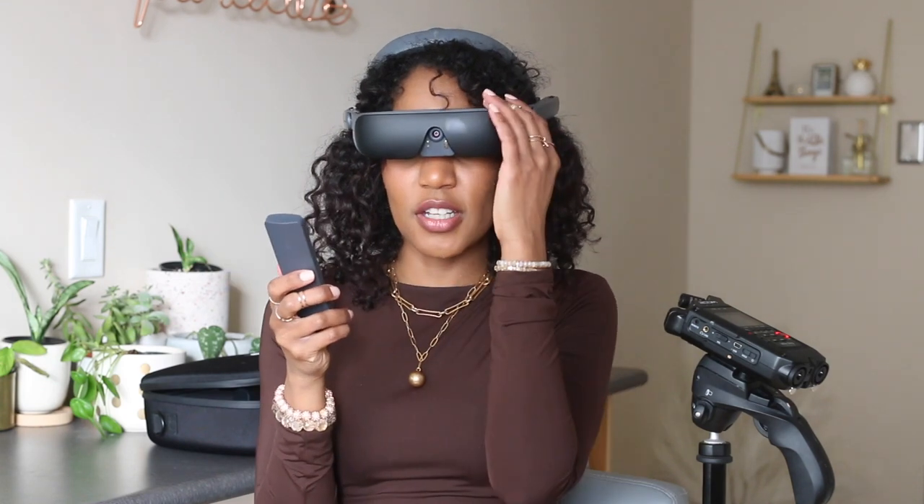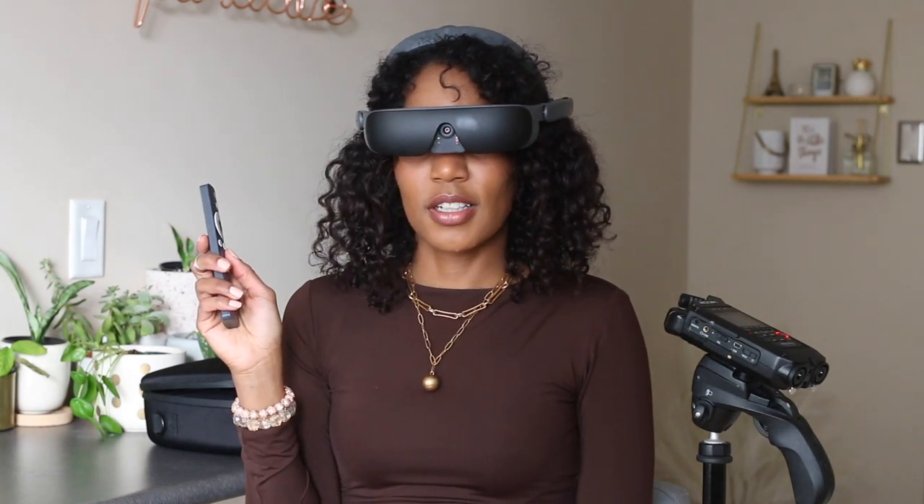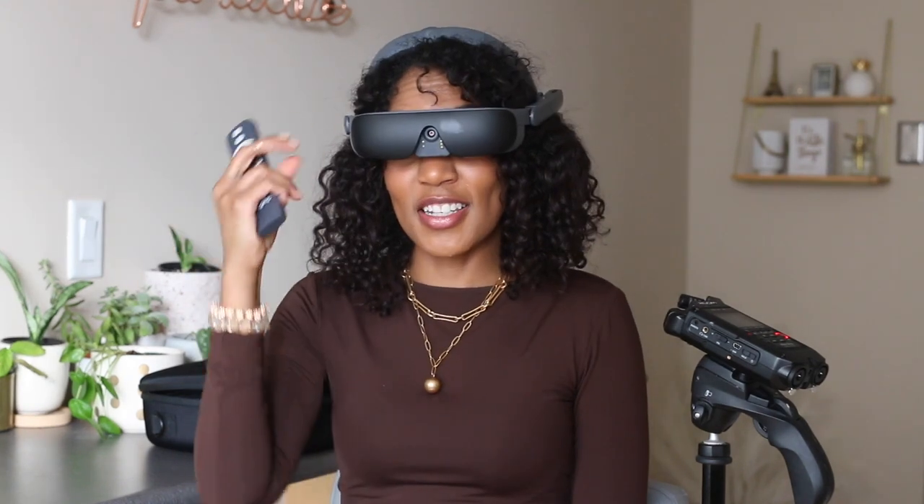It's toggling between zoomed in and zoomed out. I'm going to turn up the voice so you can hear better. Personally I like it all the way down because since I've become visually impaired and lost more vision, I've become so sensitive to sound — let me know if you're the same. It also freezes. Say you're at an art gallery — this actually happened to me a couple years back, I wish I had this — and you're looking at an installation but there's a huge panel with all this text. When you're living life legally blind you can freeze or take a picture and be able to read what it says.